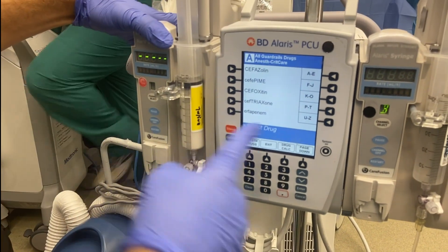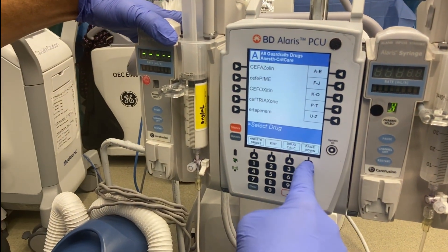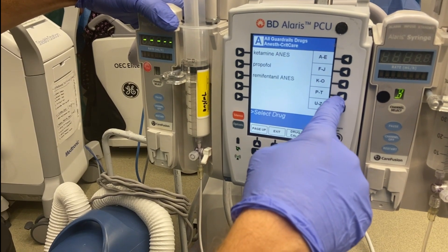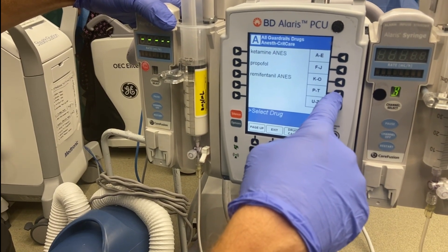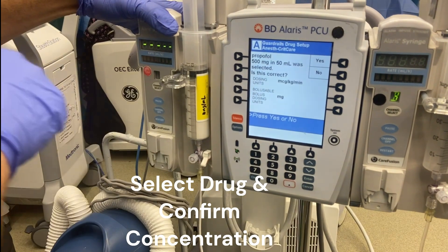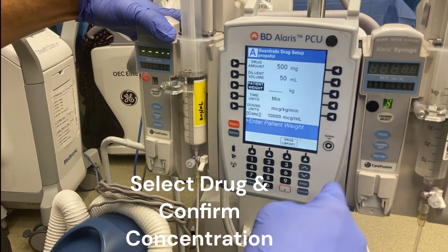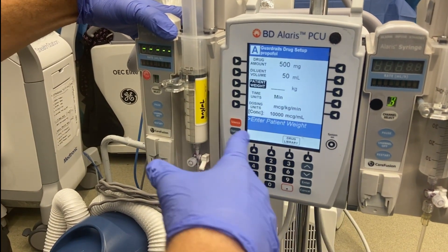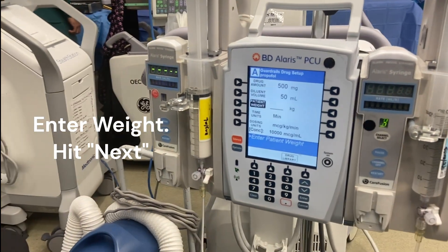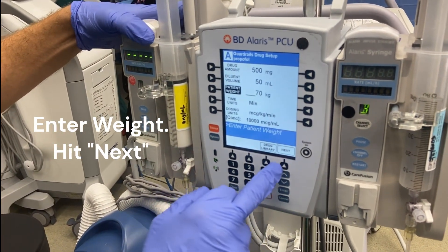Now that I've selected all drugs, I can go to propofol. I can either keep pushing page down or I could hit the P for propofol. So now we'll hit propofol. That is the correct concentration. I'm going to enter the patient's weight — let's just say it's 70 kilograms. Next.